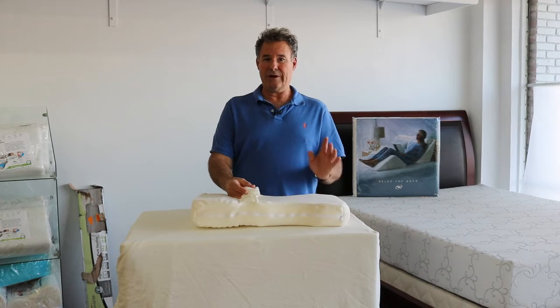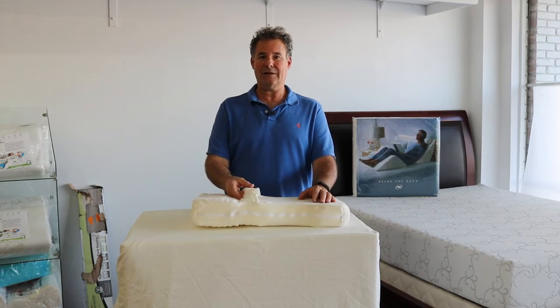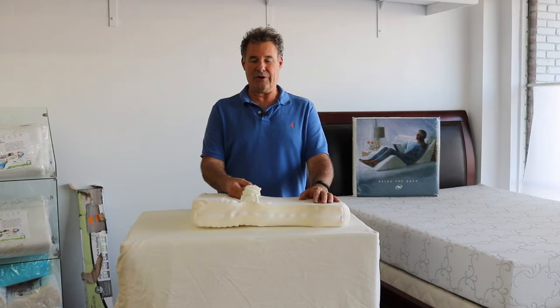The Knee T has gone through medical trials, has a U.S. patent, and is paid for by insurance companies when prescribed by doctors.